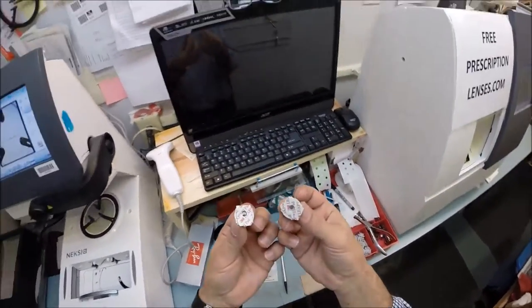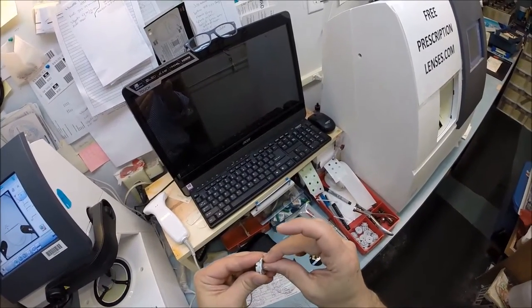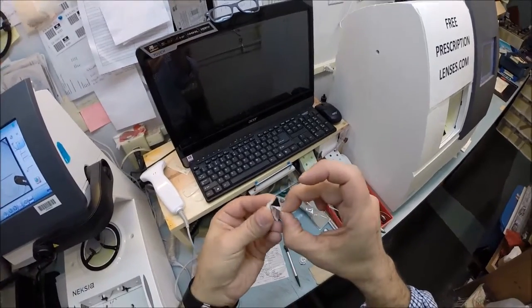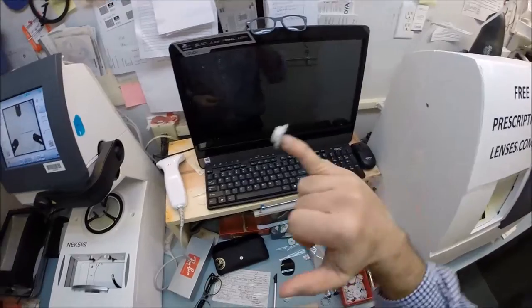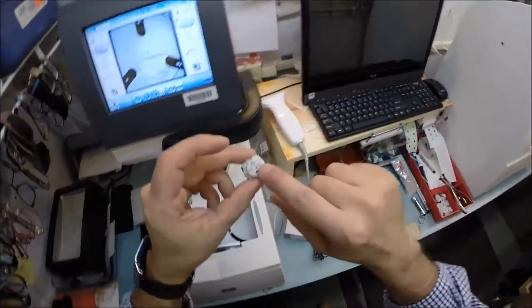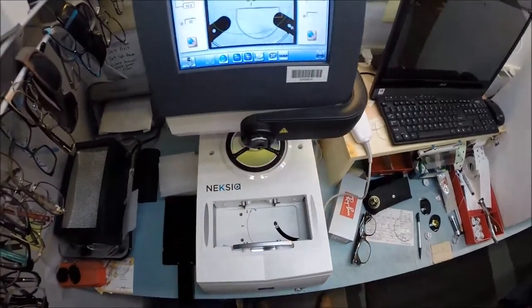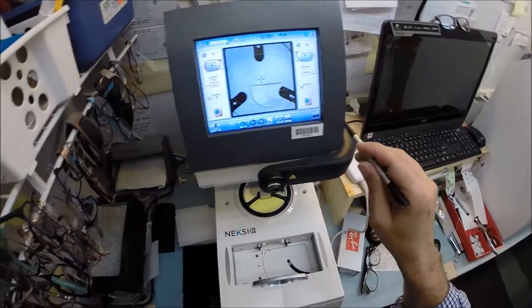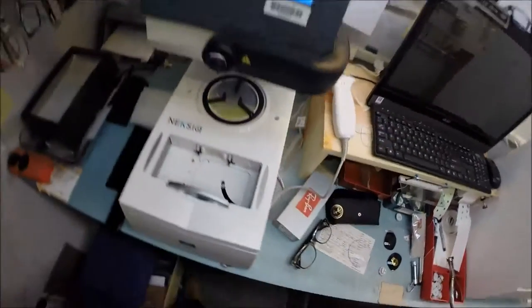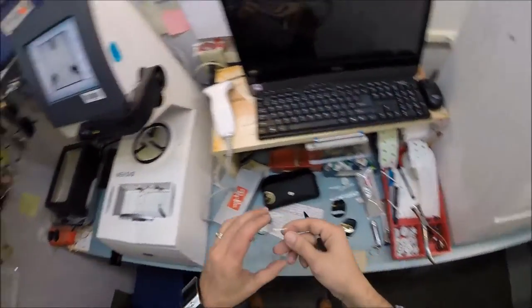I'm gonna attach that to one of these blocks. Here are the two blocks with the stickers on there. I'm gonna peel away the sticker to make the backside sticky. The little silver button on the back is a magnet - that's what's gonna hold it in place. I'm gonna hit the button. That's gonna block drop the block onto the lens.